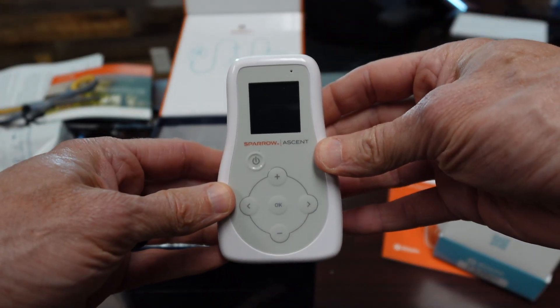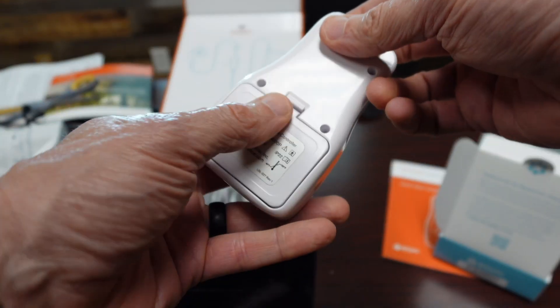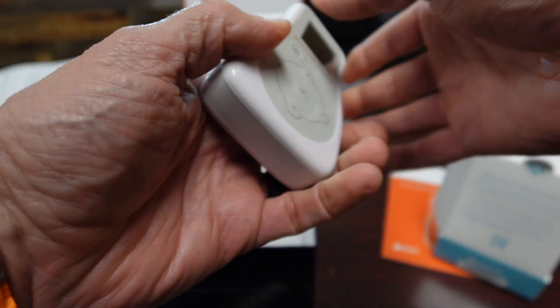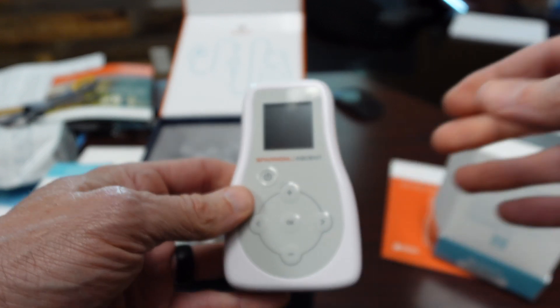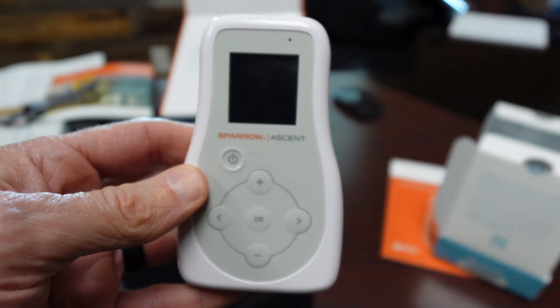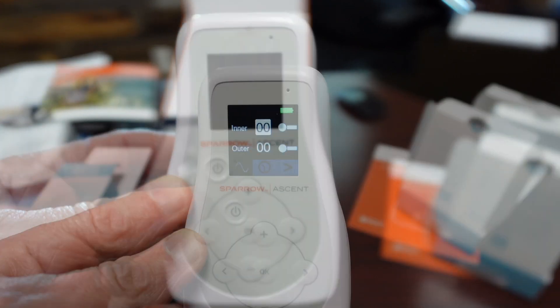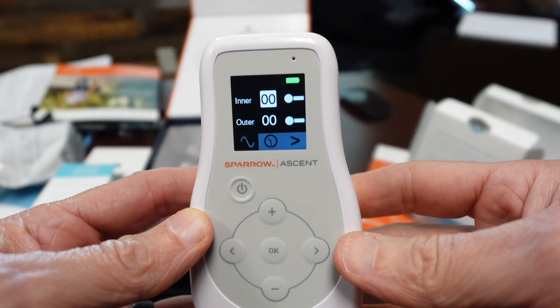A box is, I don't know, $600 to $800 or something like that. The controller takes three AA batteries. Depending on the level of stimulation, that can last anywhere from a day to a day and a half, maybe two days at the most. So we have plenty of batteries on hand. It actually comes with a number of batteries, which is generous.